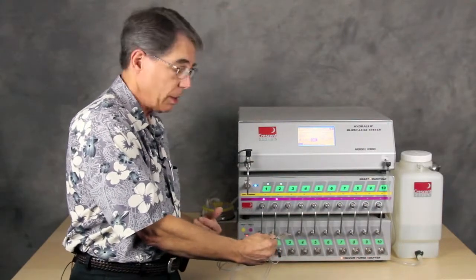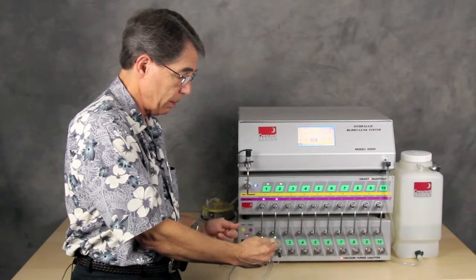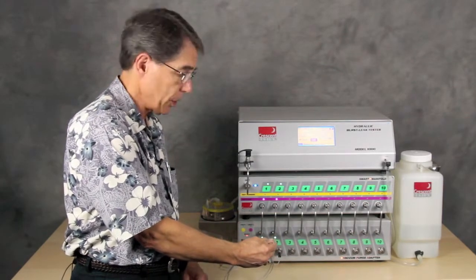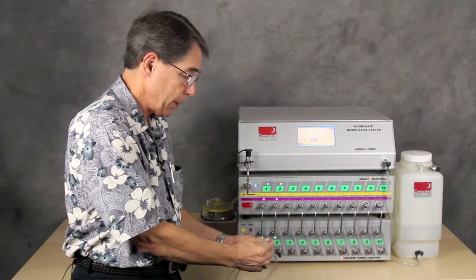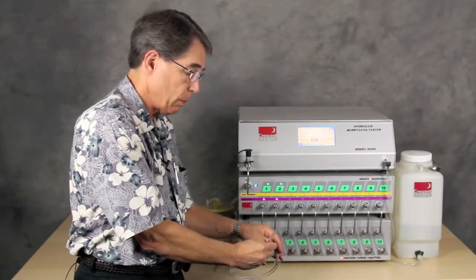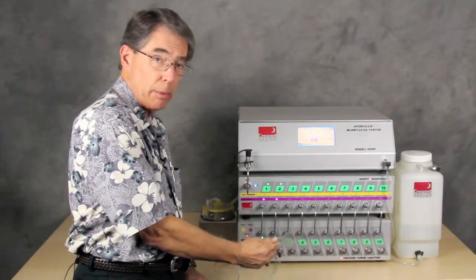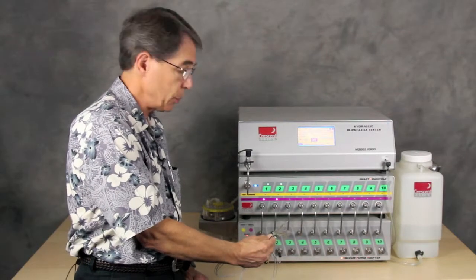And as you can see, it actually took quite a bit less than 40 seconds. And that can be established empirically depending on whichever product that you're choosing to do. But that completely automates the process of preparing the catheter for testing, and then running the test, and then evacuating the catheter afterwards, if that's what you choose to do.